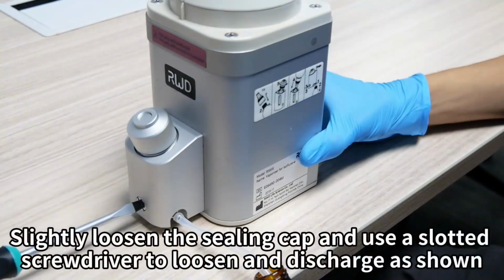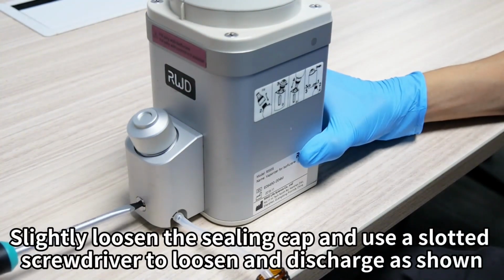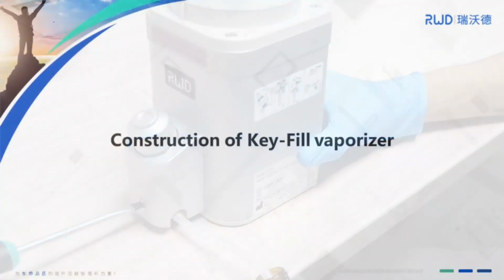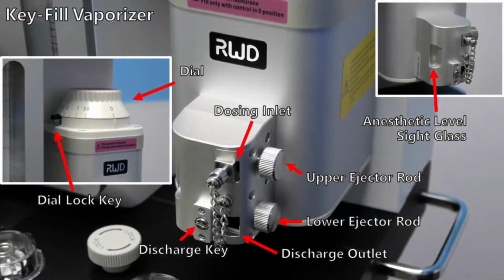Slightly loosen the sealing cap and use a slotted screwdriver to loosen and discharge as shown. After discharging, please reset and tighten them all. The structure of key fill vaporizer is shown in the video.